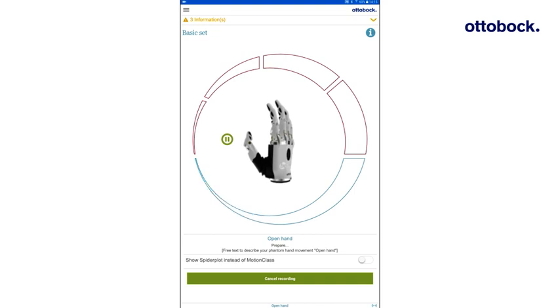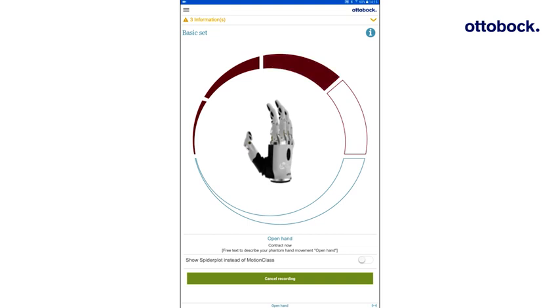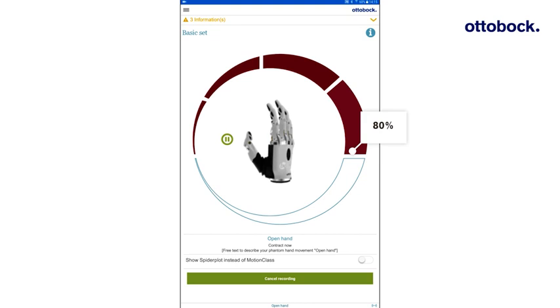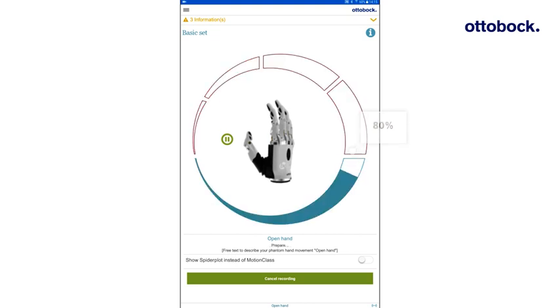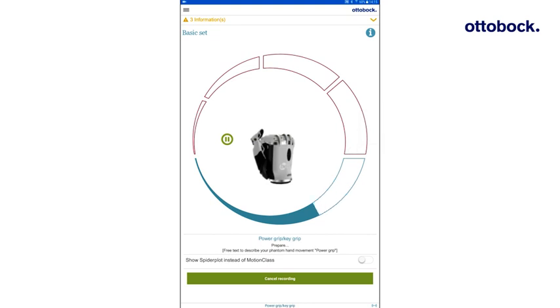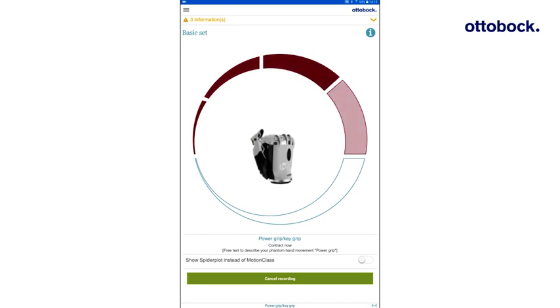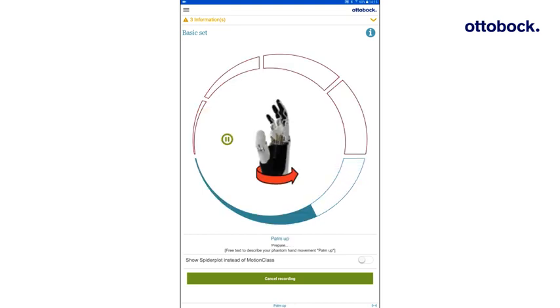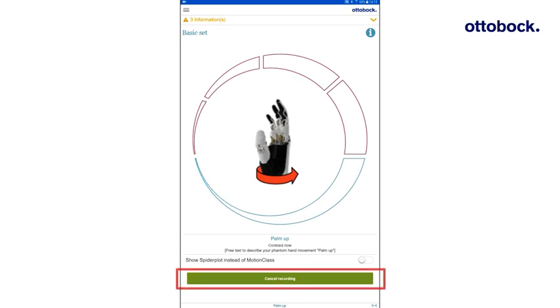Throughout the subsequent red phases, the user must perform the displayed phantom hand movements as follows. The user should start with a relaxed phantom hand. In section 1 and 2, the phantom hand should be positioned. In section 3 and 4, the contraction strength should be continuously increased up to 80% of the maximum contraction strength. The continuous increase of the contraction strength is important for the proportional control of grip speed and grip force. In case the user makes a mistake, cancel the recording and record the set again.